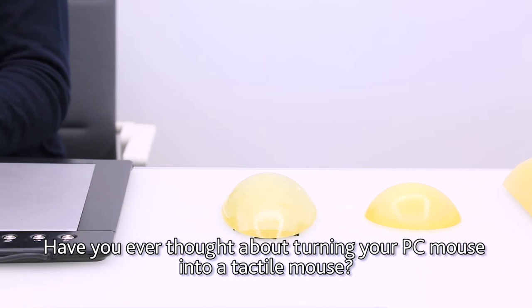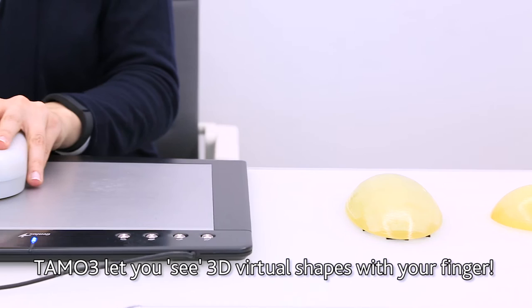Have you ever thought about turning your PC mouse into a tactile mouse? TAMO3 lets you see 3D virtual shapes with your finger.